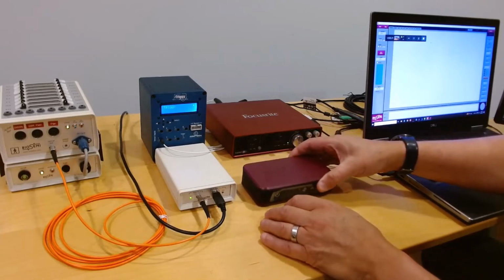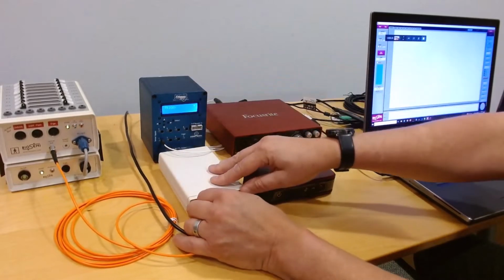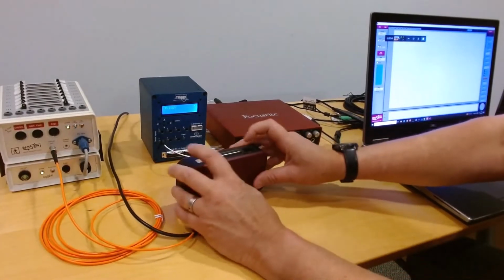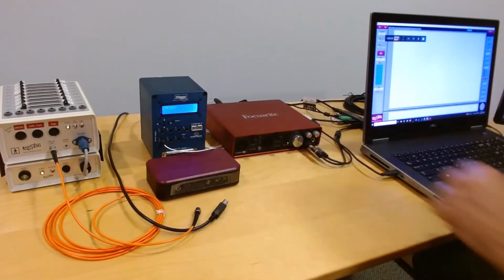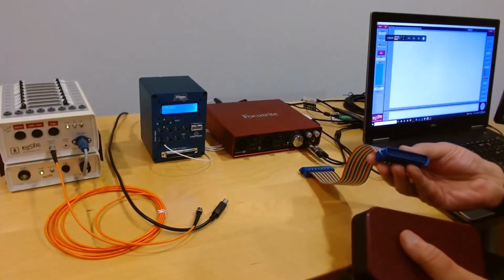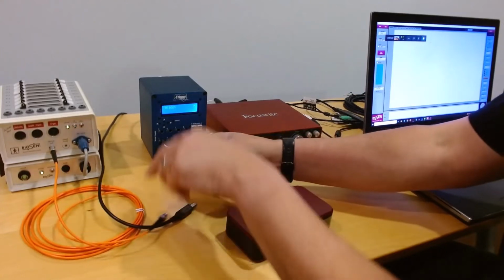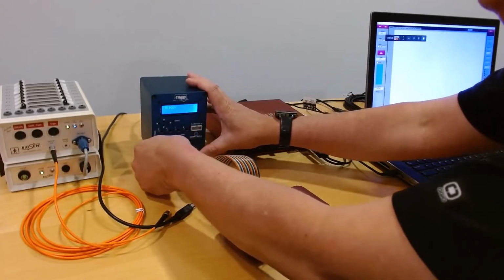If you're using the newer style, then one main difference between how you connect the two is that the new style box can't plug in here directly because it has other connectors that will obstruct the connection. So actually what you need to do is use an adapter cable in between. I have a relatively long one here. You could use a shorter one. Let's just take this example of a longer adapter cable. It's basically just a straight through 37 to 37 cable.